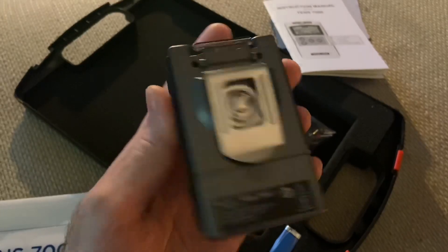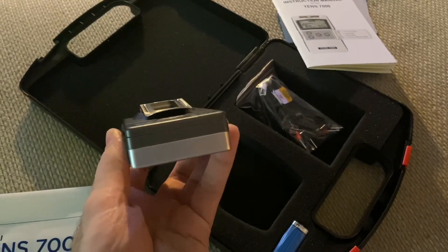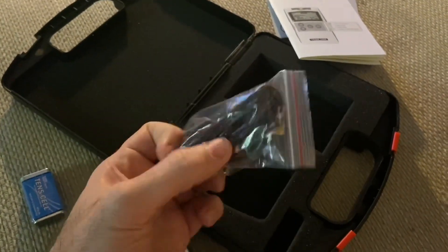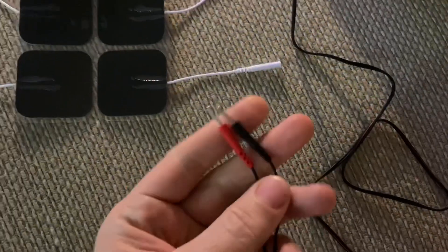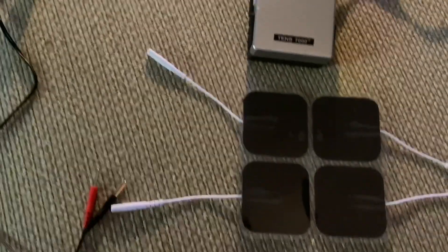There you are. This is where the electrodes are going to plug into. Let me go ahead and pop in the battery. Here are my cables for the electrodes. This is powered off a 9-volt battery, and I've got two leads coming off. I'll plug into these electrode pads. I've got two discrete channels, so let me get those plugged in and wired up.